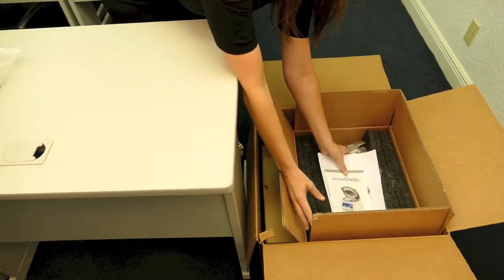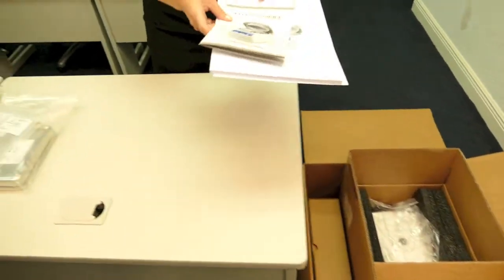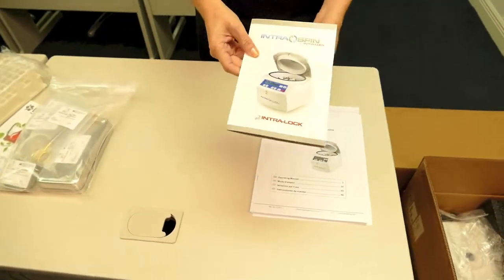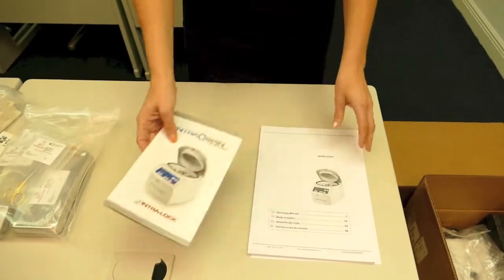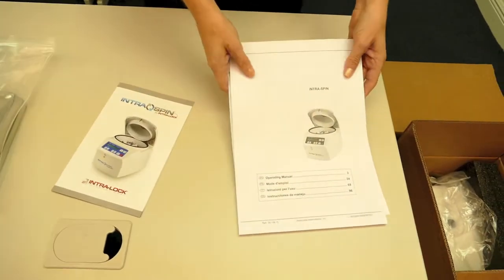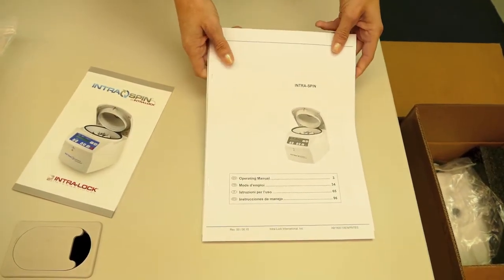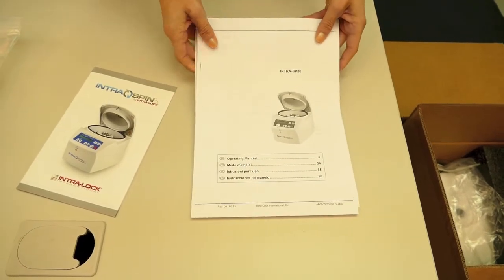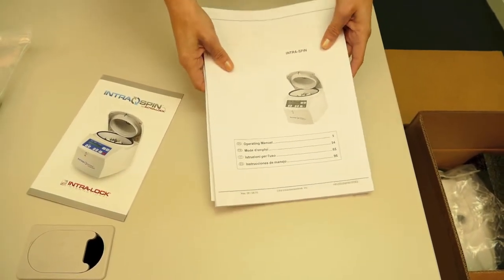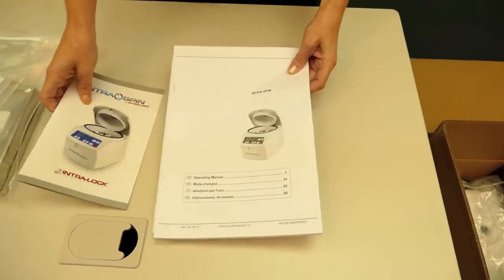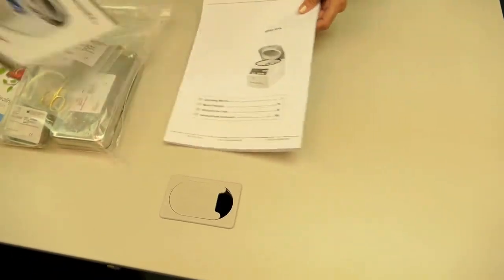Next, you're going to remove the paperwork. Very important. You'll see you'll have your protocol manual and the next thing you're going to see is very important. This is your technical manual. I know it looks very thick and wordy, but it's very informative. Please review this with your staff and we're going to place that aside for now.